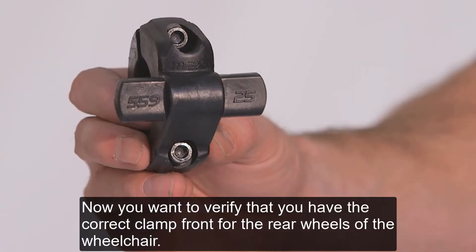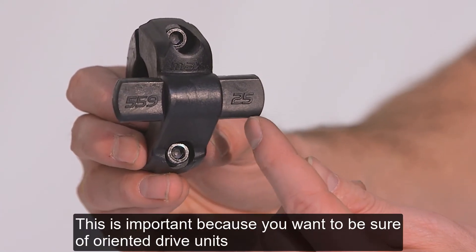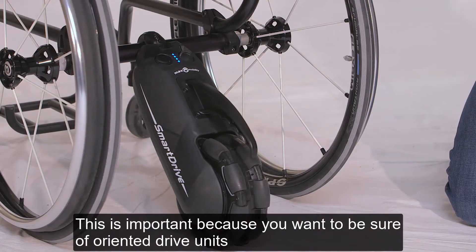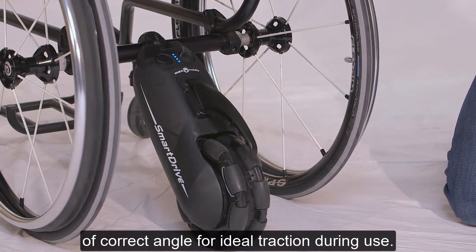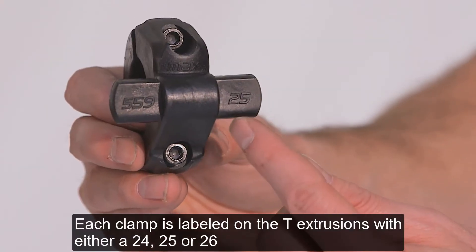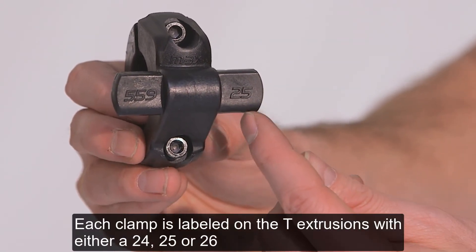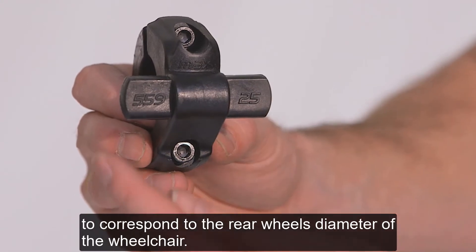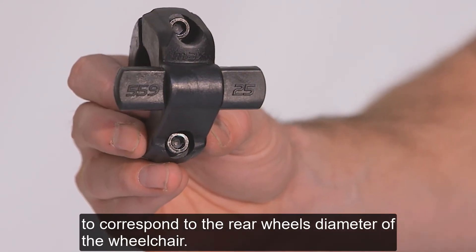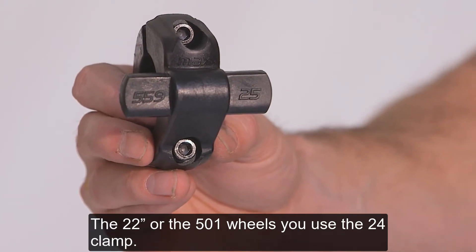Now you want to verify that you have the correct clamp front for the rear wheels of the wheelchair. This is important because you want to be sure to orient the drive unit at the correct angle for ideal traction during use. Each clamp is labeled on the T-extrusions with either a 24, 25, or 26 to correspond to the rear wheel diameter of the wheelchair. For 22-inch or 501 wheels, you'll use the 24 clamp.